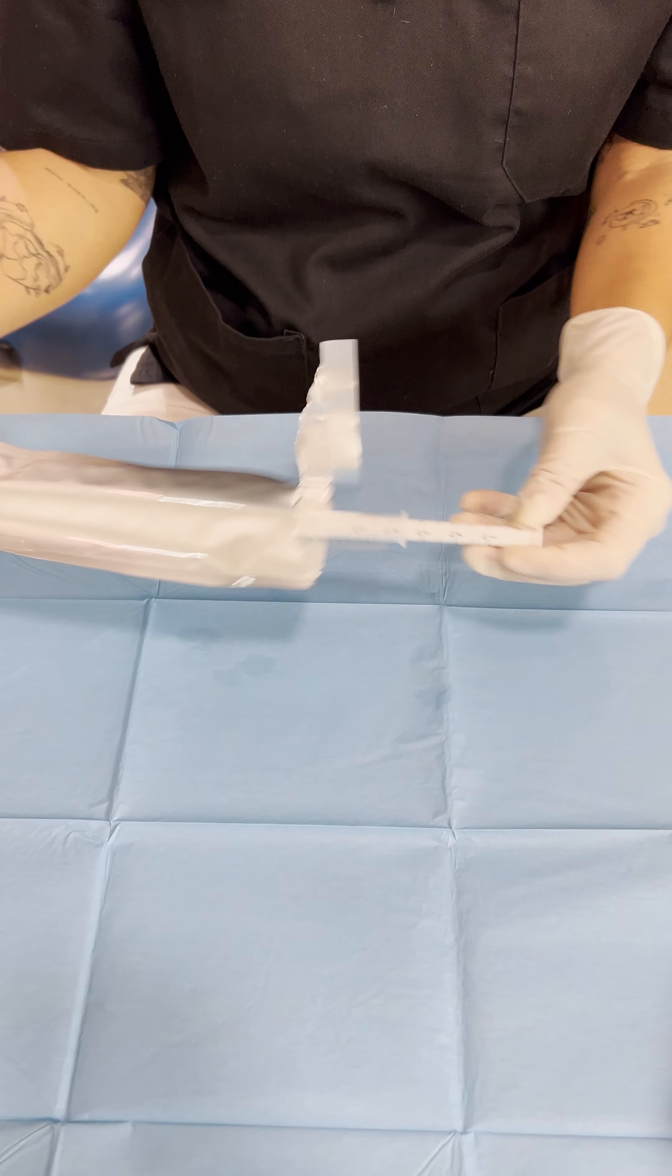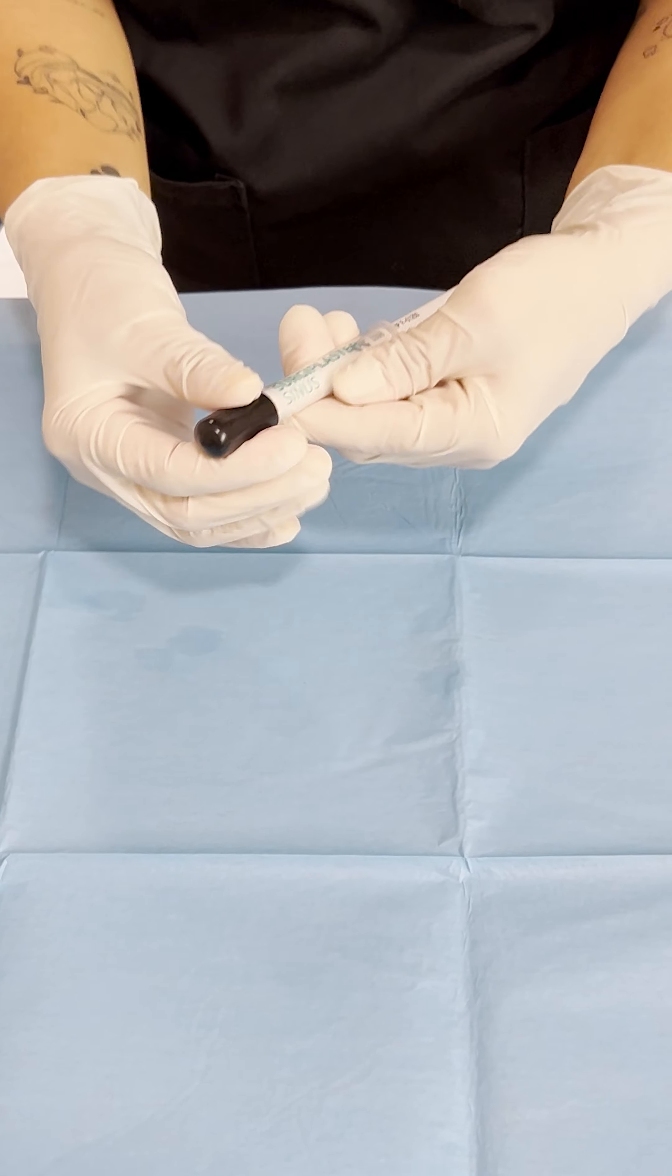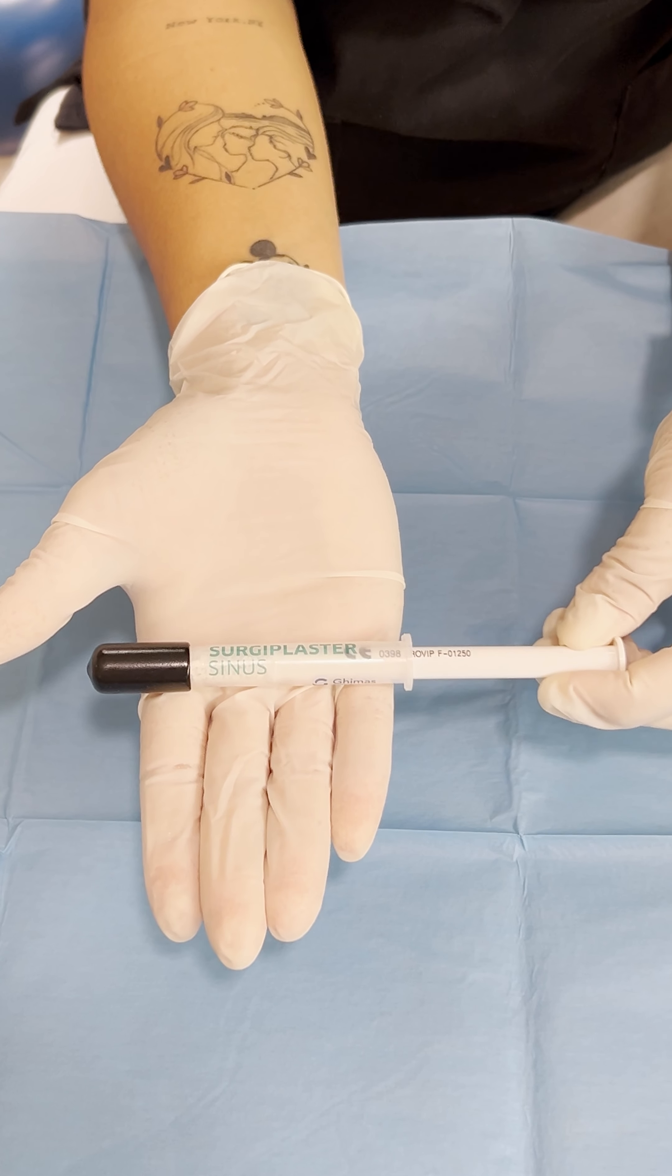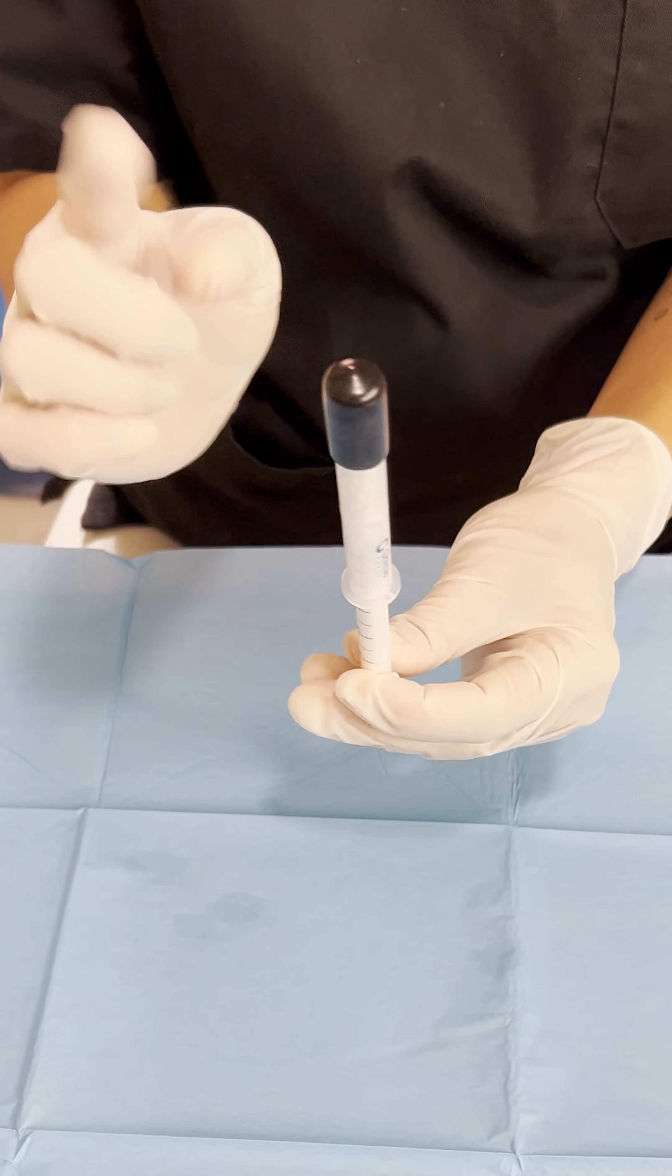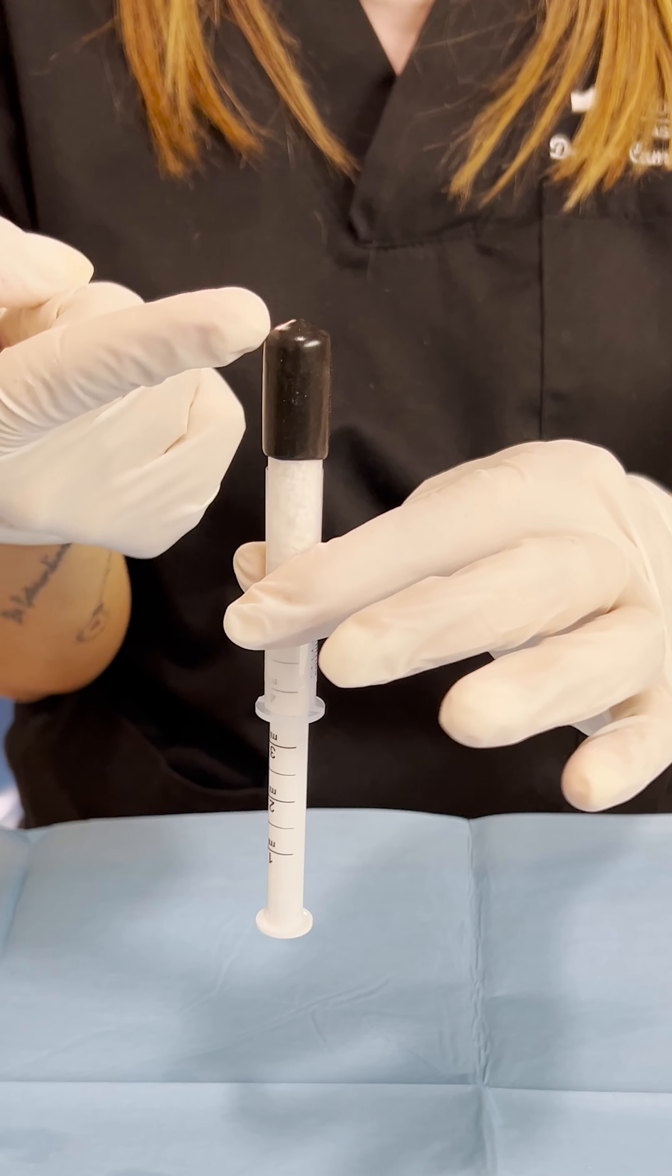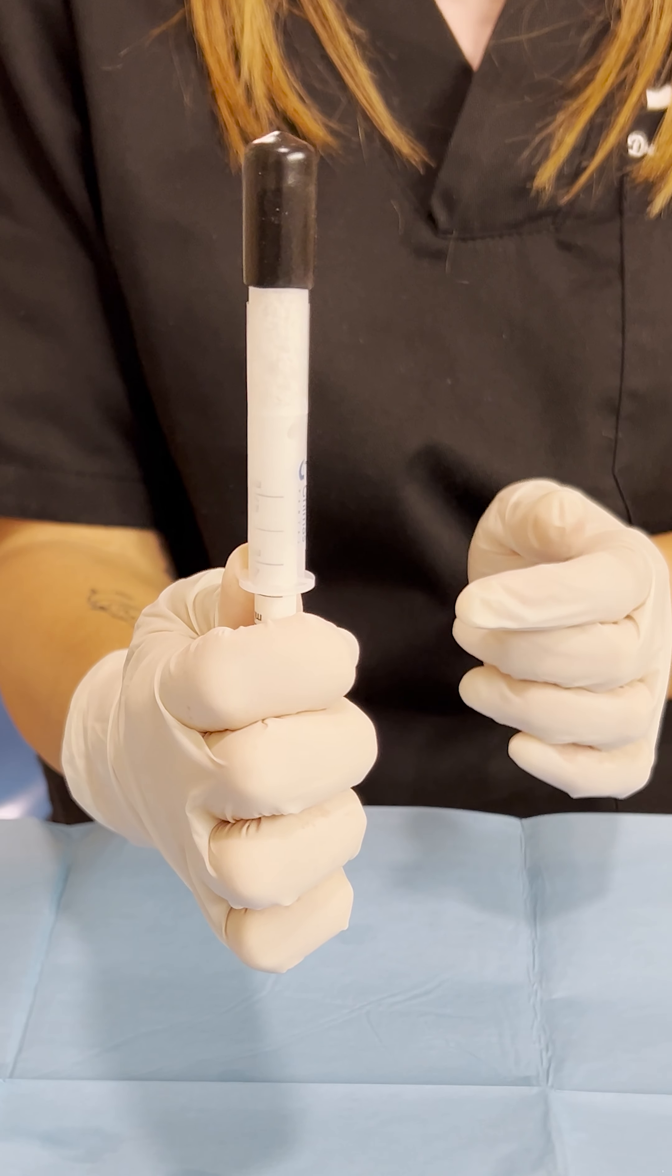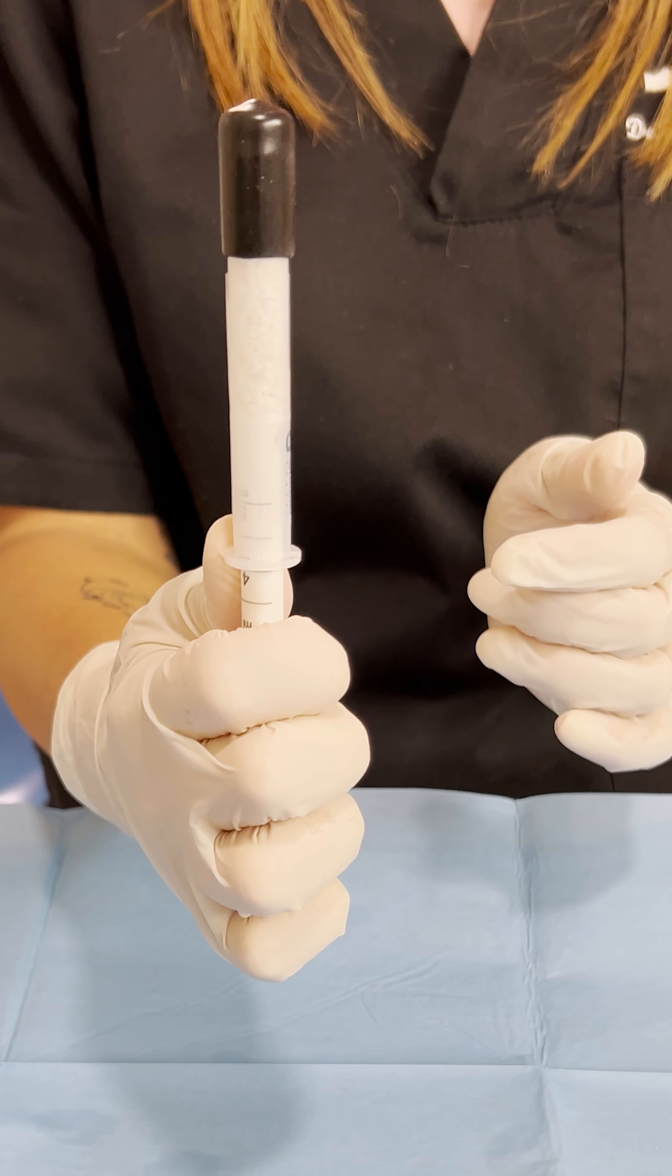A little trick before the first use: if you open this cap, you know that it's filled up until the end over here. So what you want to do is pull it a little bit downward in order for the granules to go back.